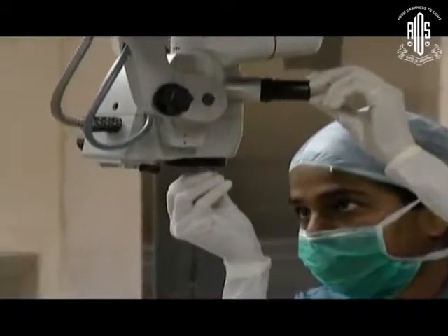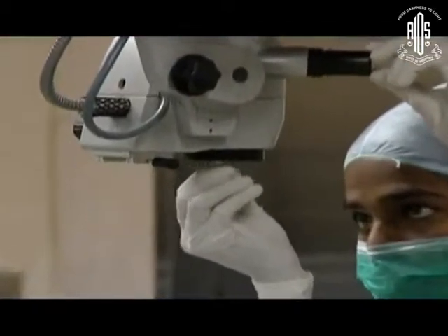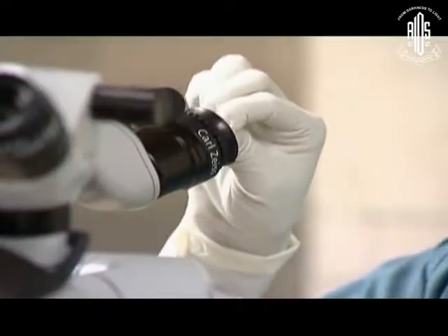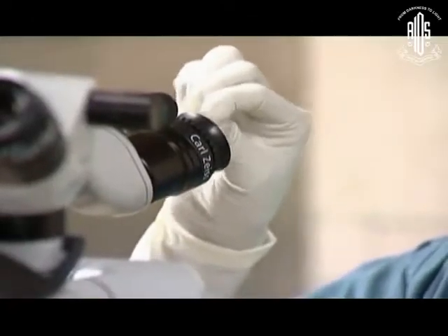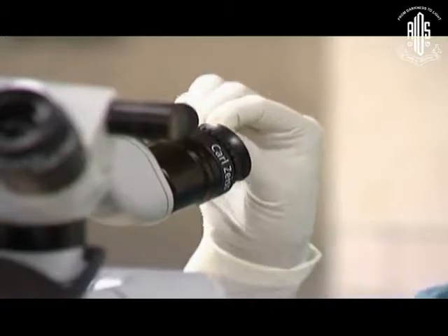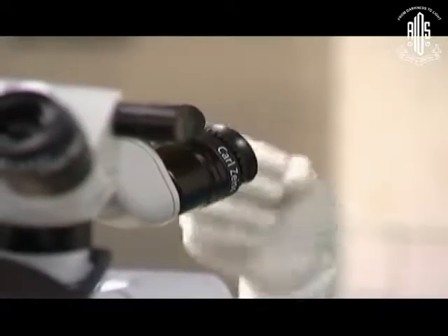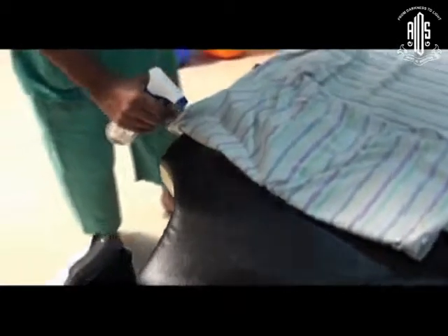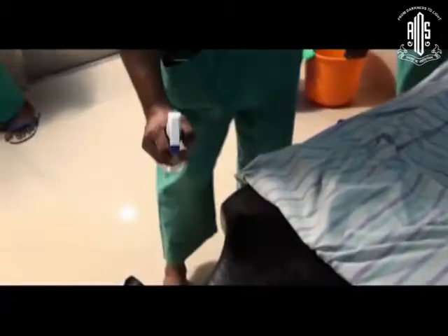The lens should not be cleaned directly with cotton. Distilled water should normally be used to clean the lens, otherwise the coating will be affected. Clean in a circular manner with distilled water. Spray the disinfectant on the table and cover it for about 10 minutes before starting theatre — this will go a long way in preventing infection.